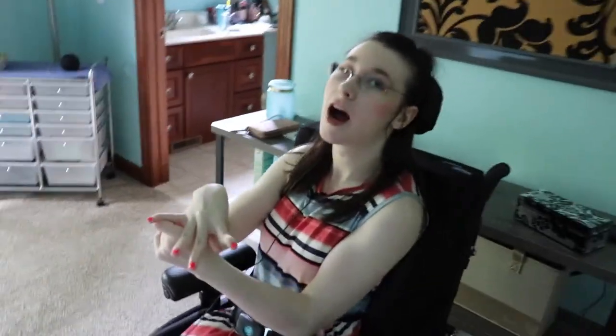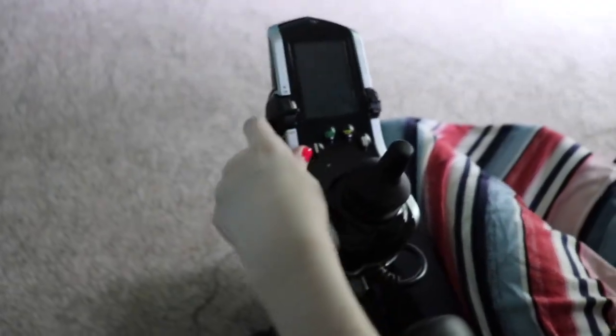What's more interesting is my joystick. It had this whole beep beep noise. They upgraded my joystick and I am so excited. I was geeking out about how bougie it looks — it just looks so sleek.